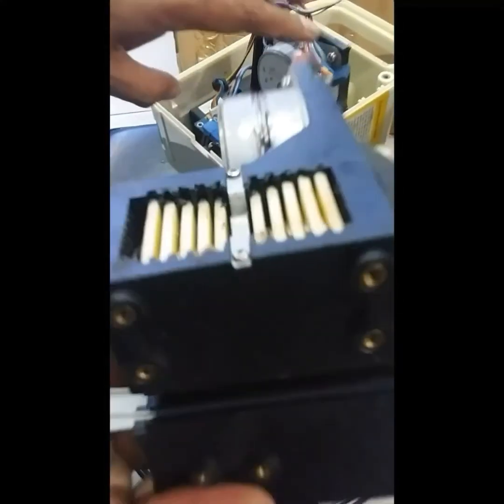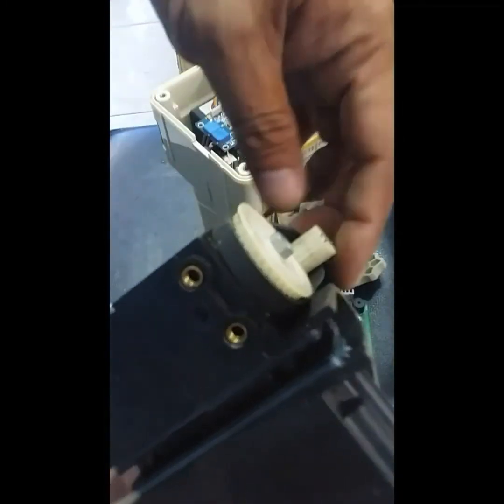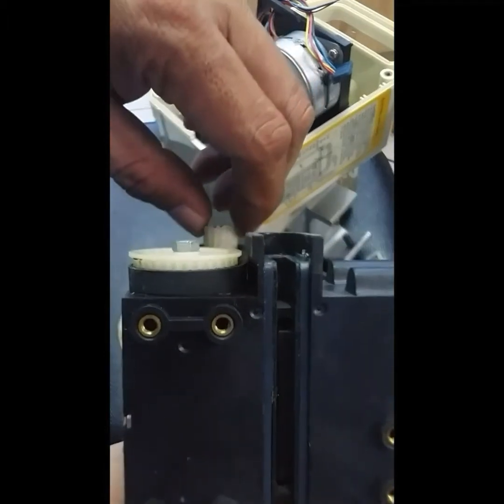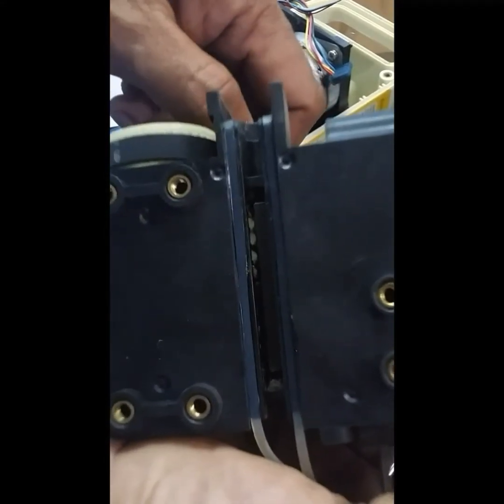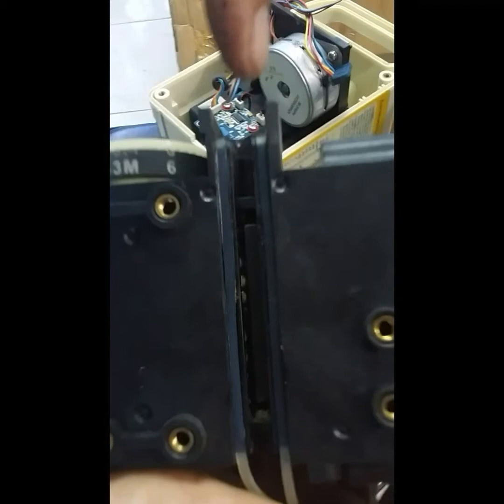Here I have another unit — it's the same, as you can see. The function of this one is: every time you switch it on and it turns, look at this portion — the tube here. This is where the tube is inserted, and every time it's operational, this is what will happen.